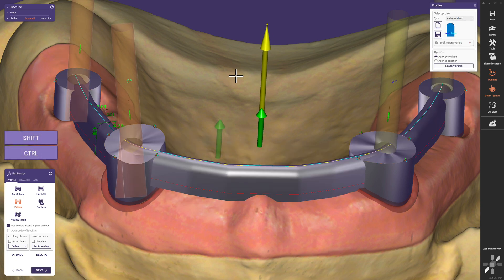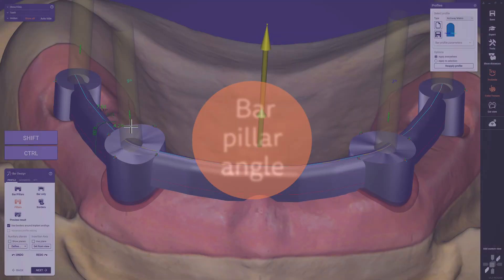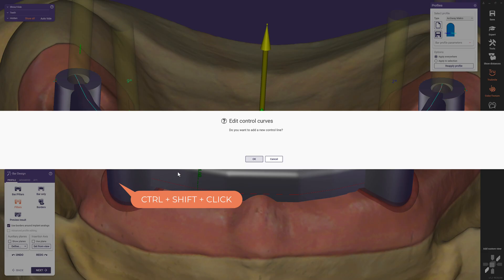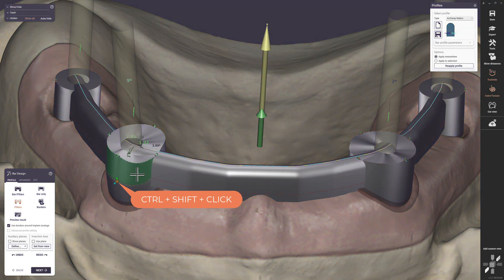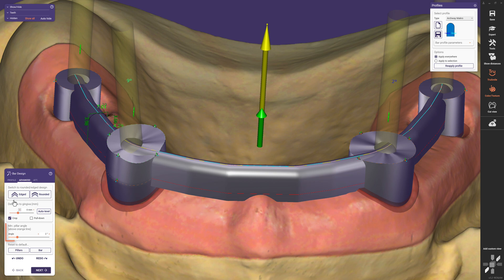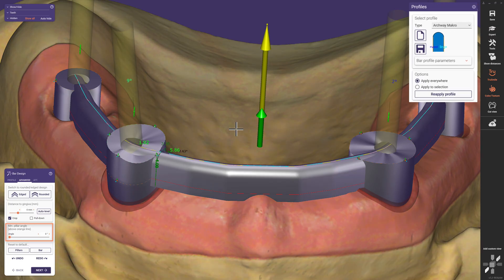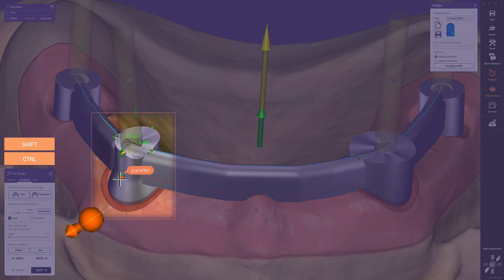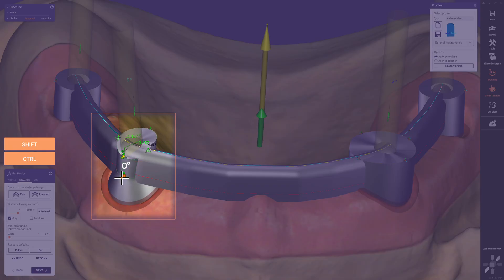Bar pillars follow the implant axis by default, which could result in undercuts. To avoid this, we can add a new control line to apply the minimum pillar angle option by holding CTRL+SHIFT and left-clicking on the bar pillar. A new control line appears, and the area above the orange line follows the insertion direction. In the Advanced tab we can define the minimum pillar angle: conical up to 10 degrees, or as recommended for this case, 0 degrees — equivalent to our parallel bar profile. Moving control points along the new orange curve makes our pillar parallel-angled at 0 degrees.